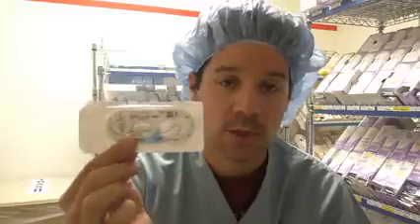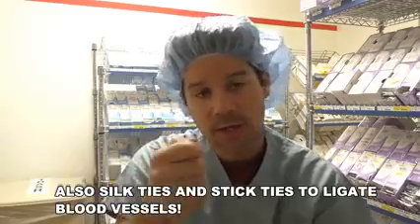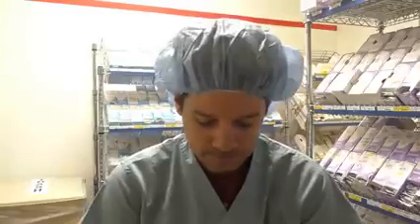The first multifilament suture I want to talk to you guys about is the silk suture. This is a non-absorbable suture, multifilament. The packaging, as you can see, is kind of bluish greenish, and the suture itself is black. Where I see this used mostly in my experience are chest tube stitches. They'll put a stitch right next to the chest tube, tie it, wrap it around the chest tube, tie it again to make sure that chest tube cannot be yanked out of the chest by accident.